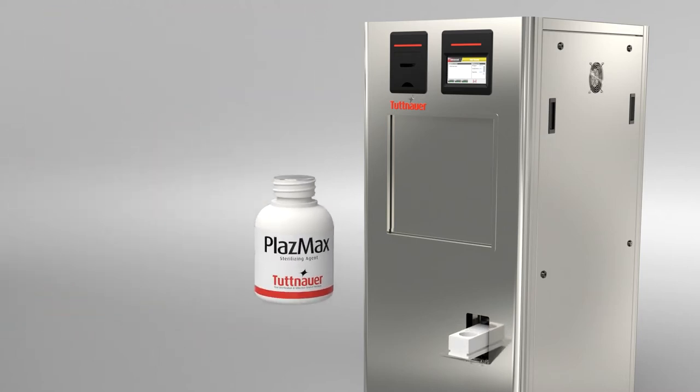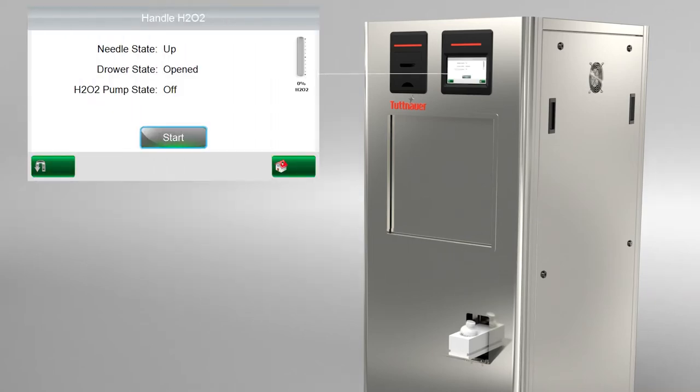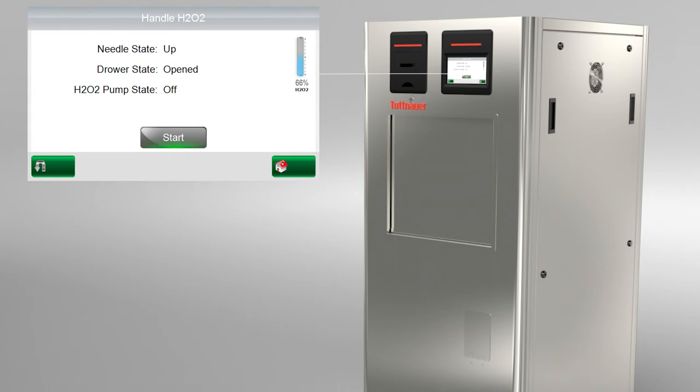Placing the bottle with its tap on will damage the machine. Use the control panel to load the new agent bottle. The sterilization agent is pumped out of the bottle.